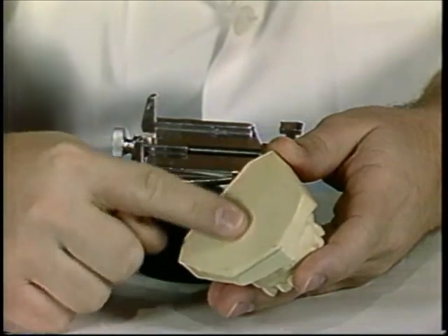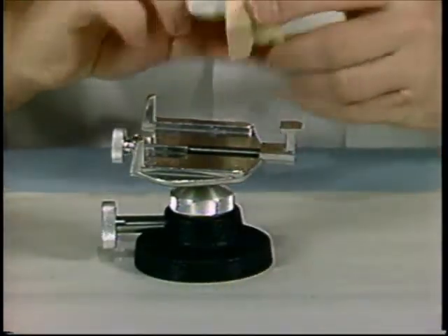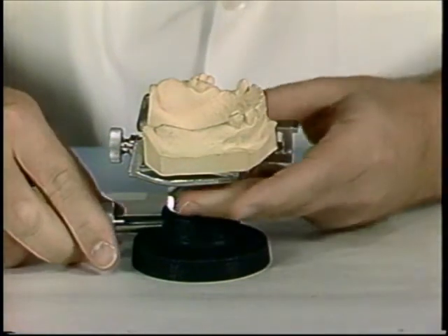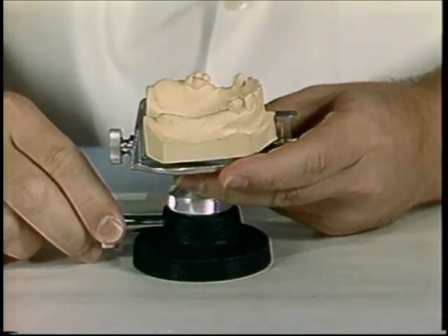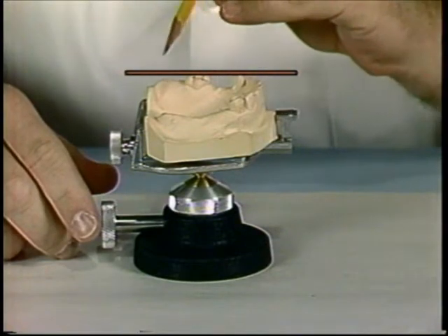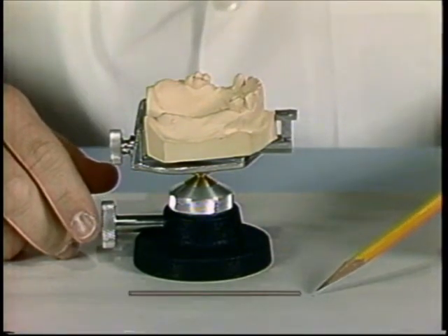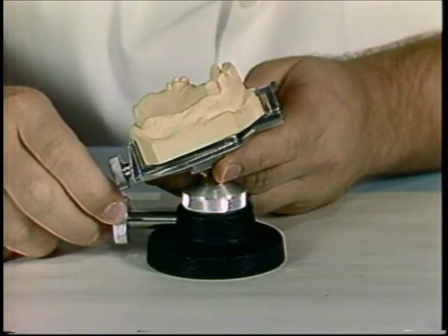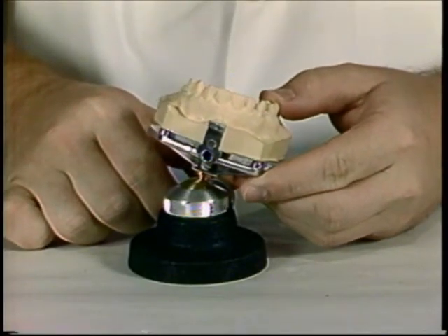To begin the surveying procedure, ensure that the base of the cast is flat. Secure the cast to the survey table. The occlusal plane of the cast should be level with the table. The cast may be tipped anteriorly or posteriorly; these movements are used to align the guiding planes. The cast may also be moved laterally, which is useful to redistribute or relocate the undercut.